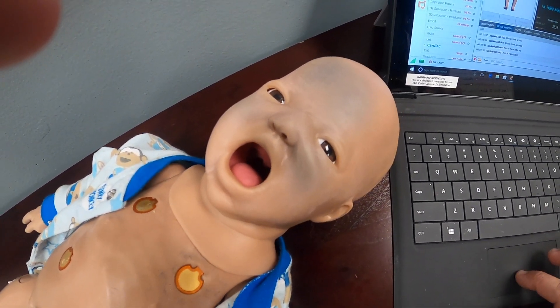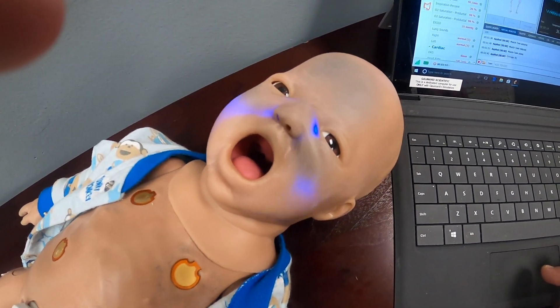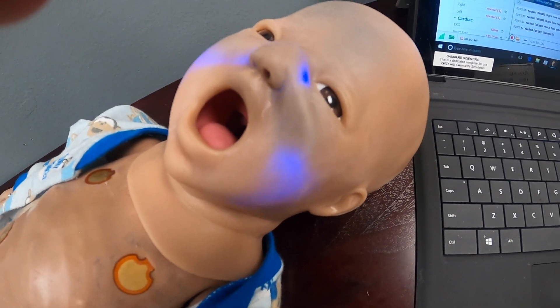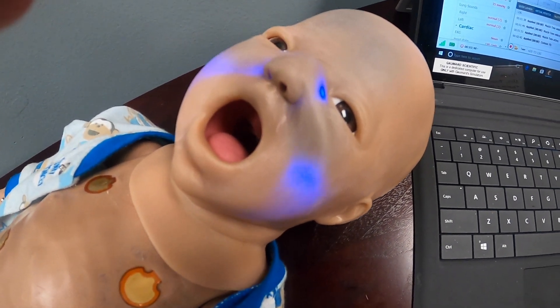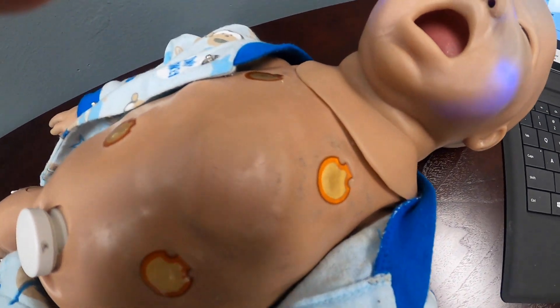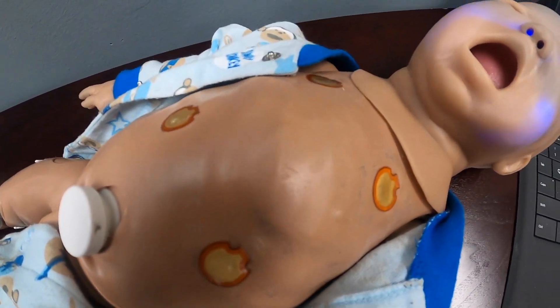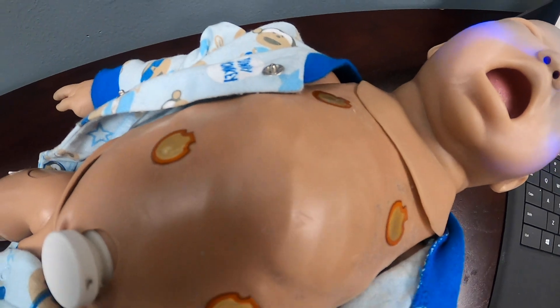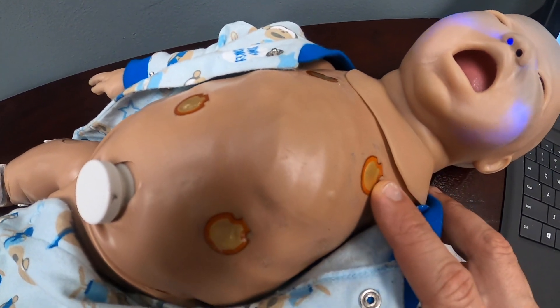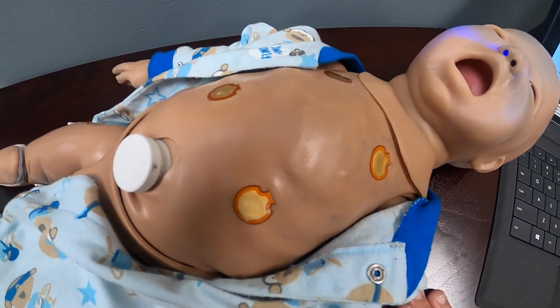Starting at the top, it can be orally intubated. If you want to represent cyanosis, blue lights will turn on in the face to represent it. Going down the chest, there are bilateral working lung sounds on both sides.